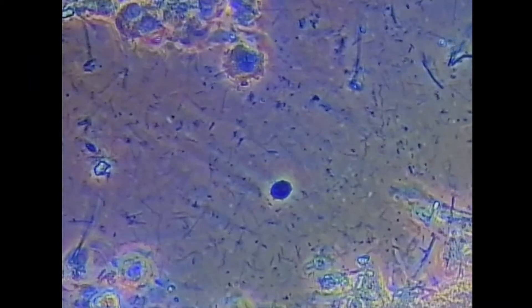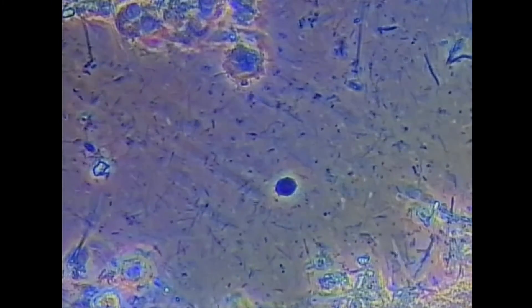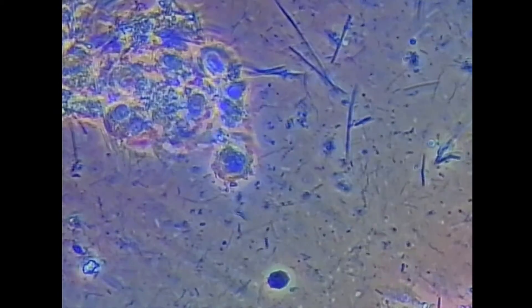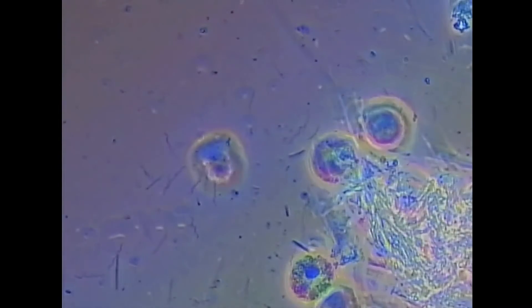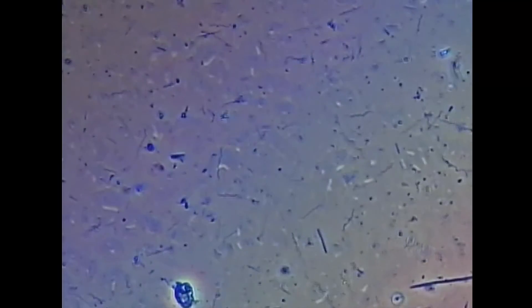I've been using my phase contrast microscope in my office for about six months. I cannot imagine any perio program in any dental office existing or being efficient without it. This is something I do not charge extra for. As a new patient, we just routinely take slides on patients as they come in and we give them a very accurate risk assessment. Existing patients are followed with slides as well.